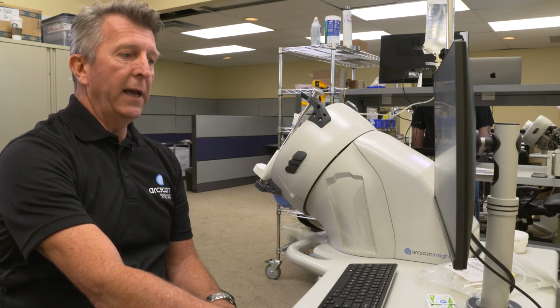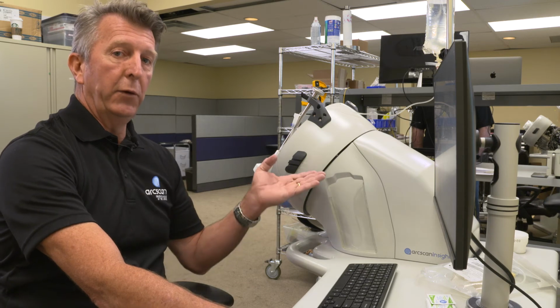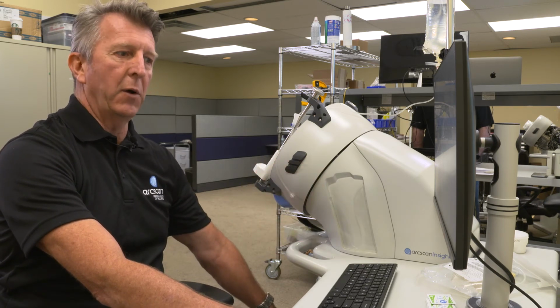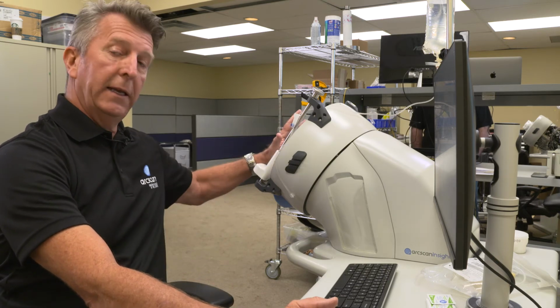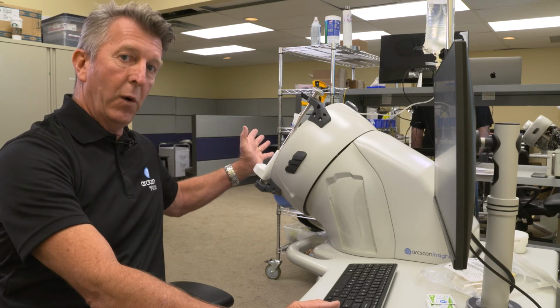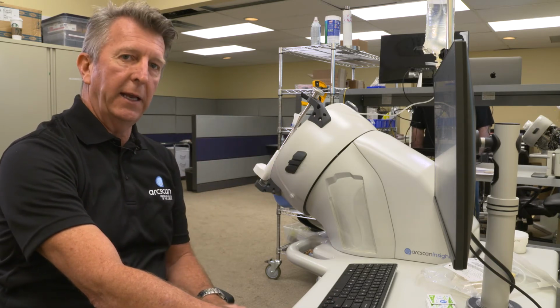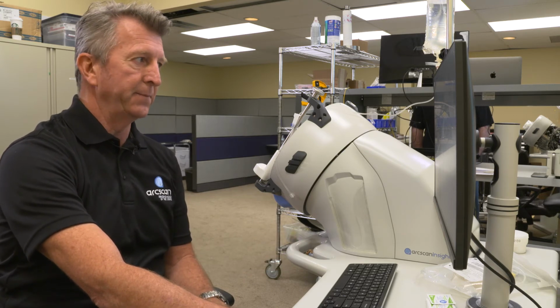Only at the end of the day would you click the drain, and that brings all the fluid out of the instrument module back down to the fluid reservoir down at the bottom. At the end of the day also, you leave the eye seal off, leave the instrument wide open so that it can just air dry. Don't worry about things getting in. The filter would take out any little particulate that might enter into the system.